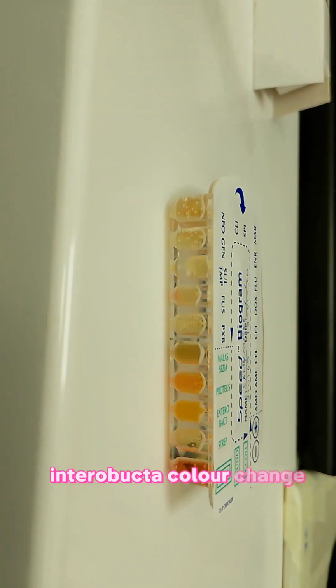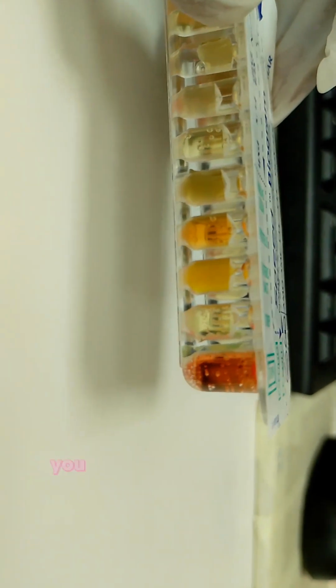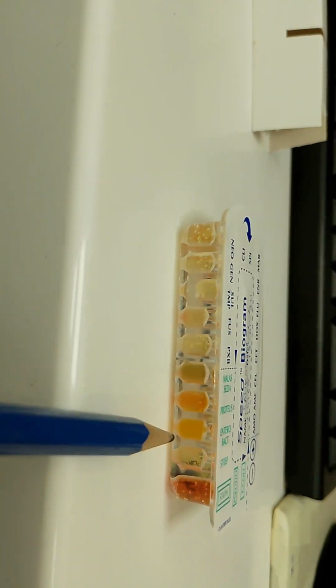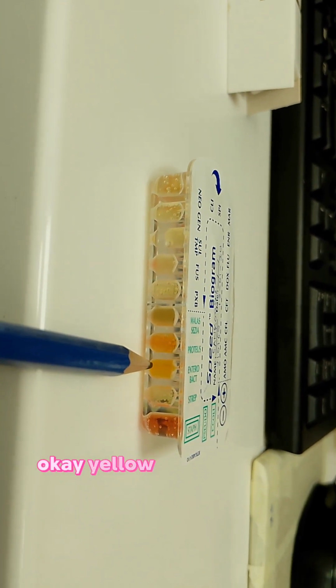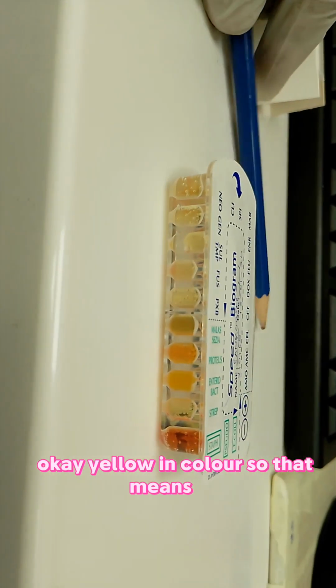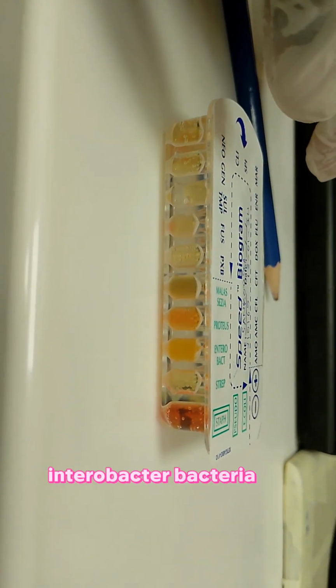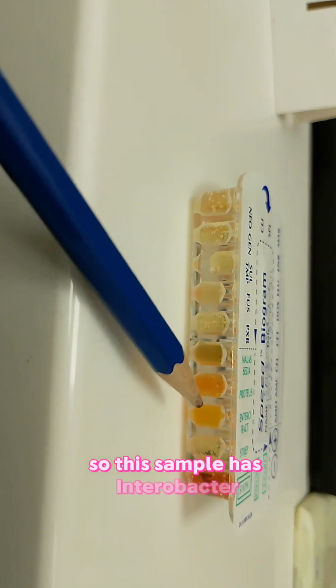Enterobacter color changed, so we are seeing yellow. You can see this is yellow, so that means Enterobacter bacteria is present. So this sample has Enterobacter.